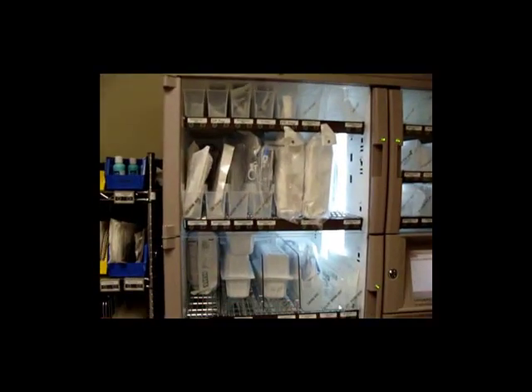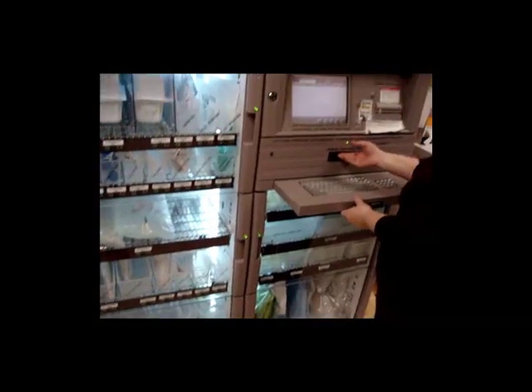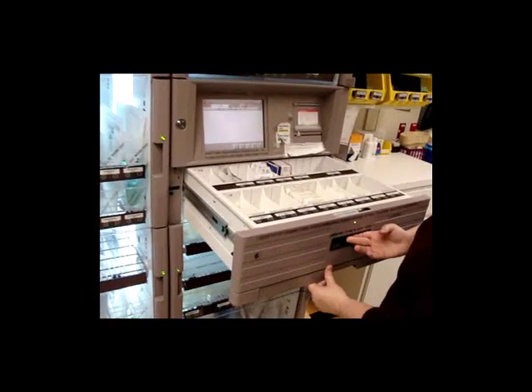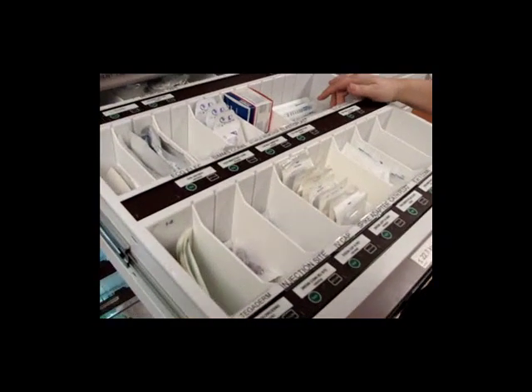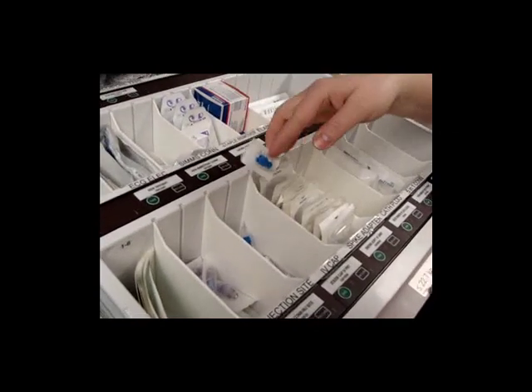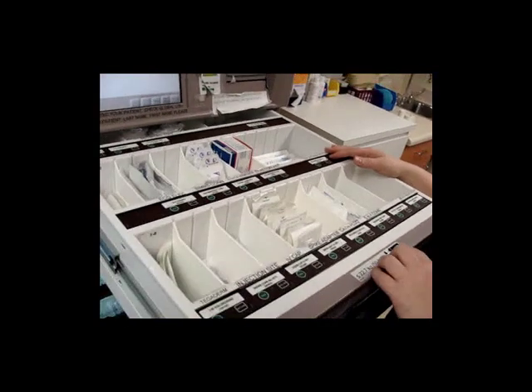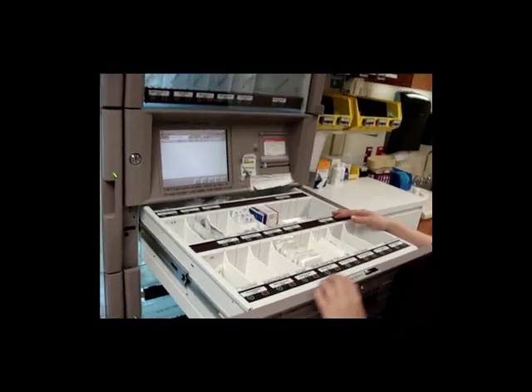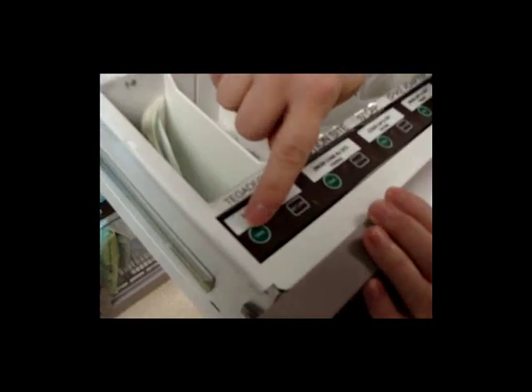The other thing is, if you have a really small item, remember that there is also a drawer. Every cabinet comes with a drawer and contains items that are small in nature and don't take up much space. So this allows us to put things like little IV caps, tiny little things, into the drawer, and you can easily find them. The way that the cabinet works is there is a Take and a Return button on every item.